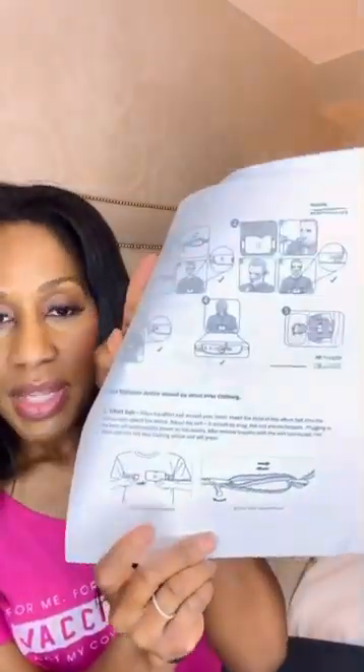I kind of looked at the instructions before this, and basically it says that the monitor doesn't come on until you hook in the belt. So next, this is the belt — this blue belt that we got. The cool thing is it's very adjustable to accommodate different sizes. What we have to do is put the monitor in this little spout upwards, around our chest. It does tell us to wear a shirt underneath, so that's why I'm wearing a shirt. Like literally these are my jammies.